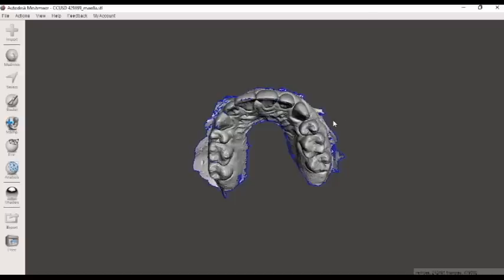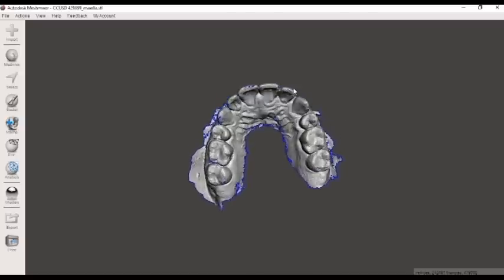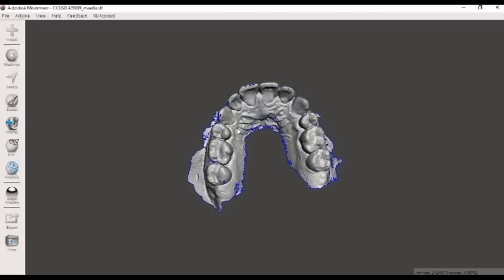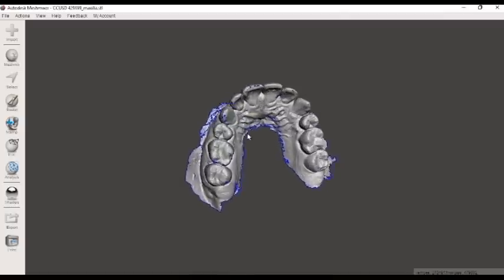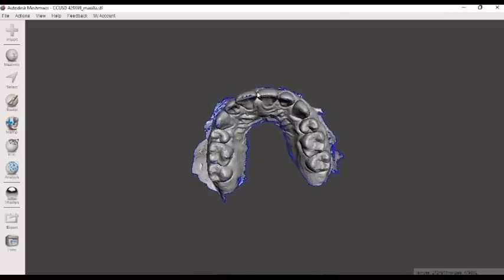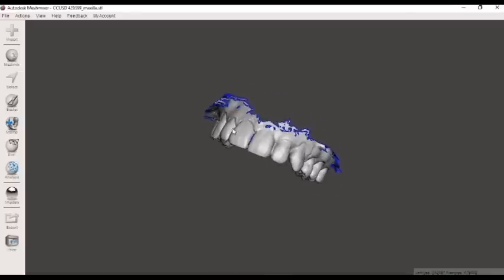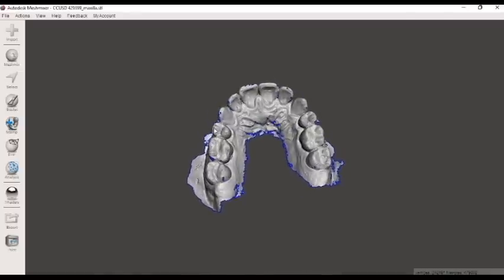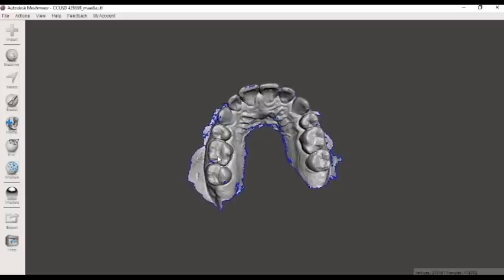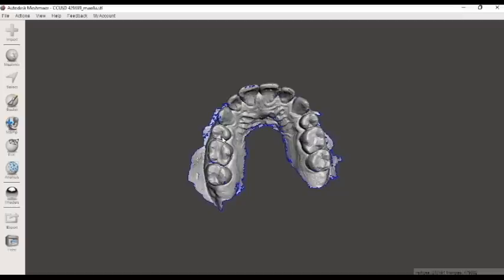Hey guys, today I'm going to be showing you how to edit your STL files in MeshMixer and get them ready for 3D printing. This one was taken with the 3M TrueDef scanner and I just exported it from the Connection Center online and brought it into MeshMixer. MeshMixer is a free open source software available online.